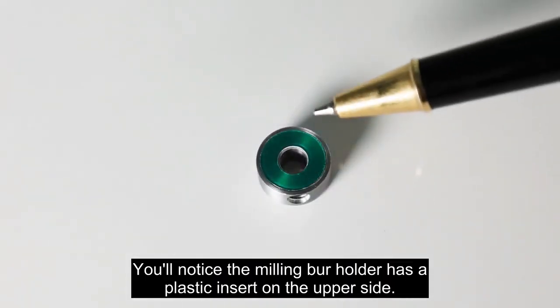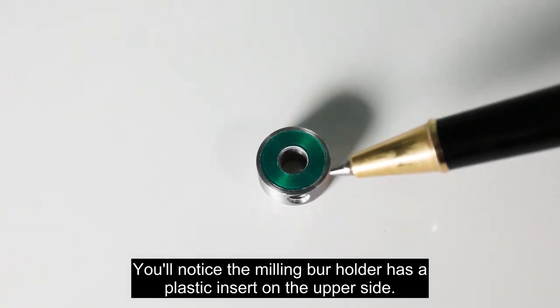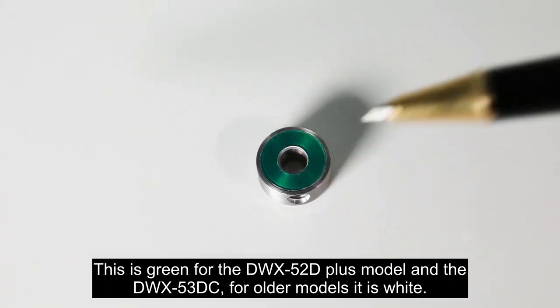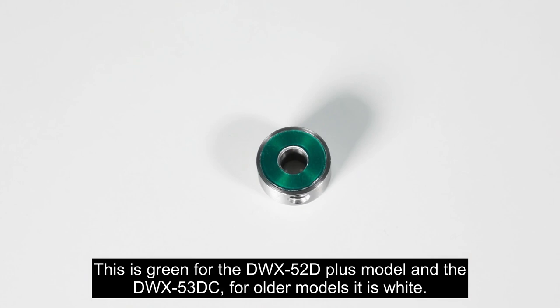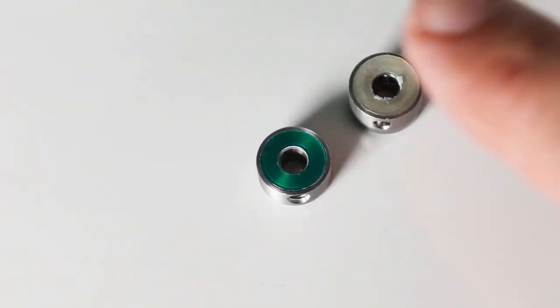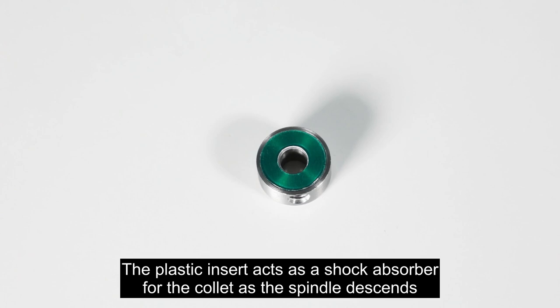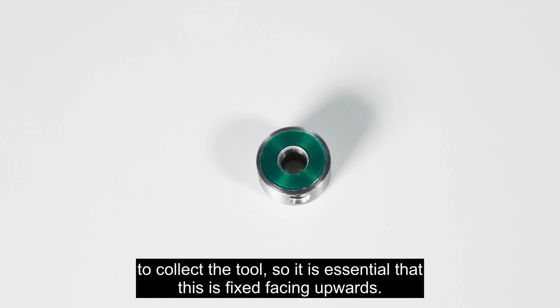You'll notice the milling burr holder has a plastic insert on the upper side. This is green for the 52D Plus model and the 53DC. For older models, it is white. The plastic insert acts as a shock absorber for the collet as the spindle descends to collect the tool, so it is essential that this is fixed facing upwards.